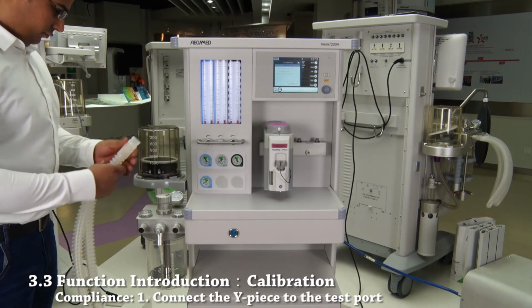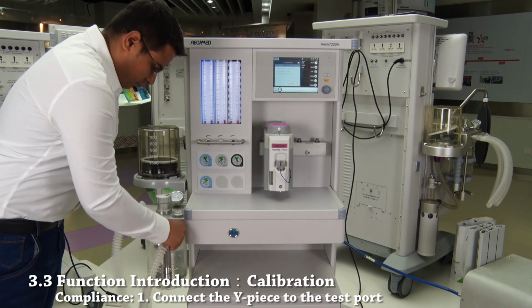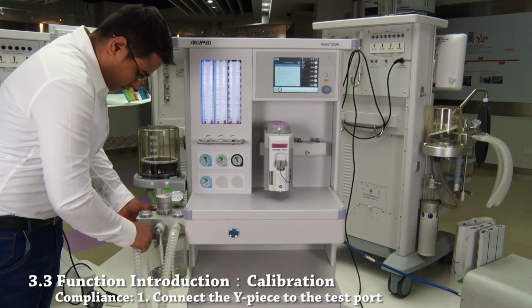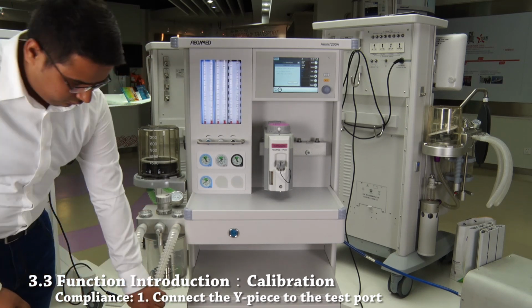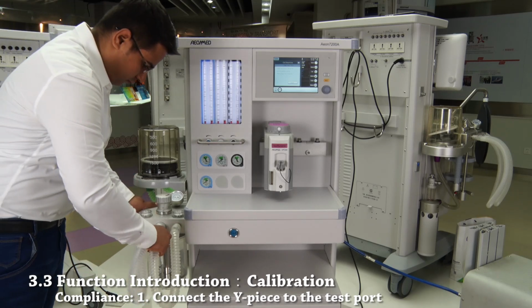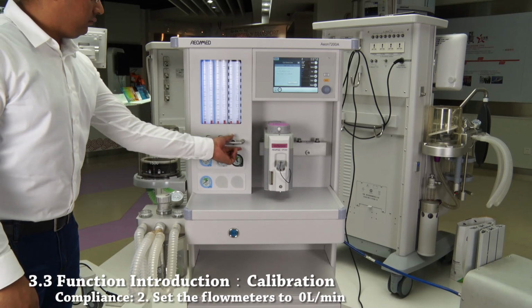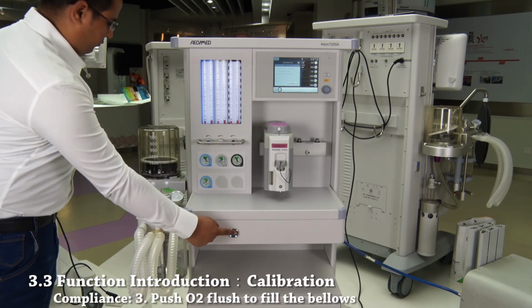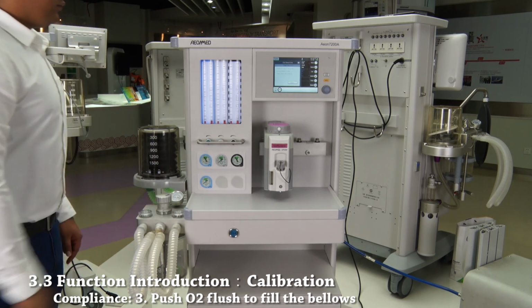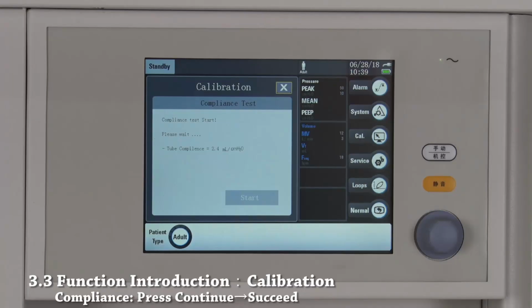First, connect the Y piece to the test port. Second, set the flow meters to 0 liters per minute. Third, push O2 flush button to fill the bellows. Press start. Done.